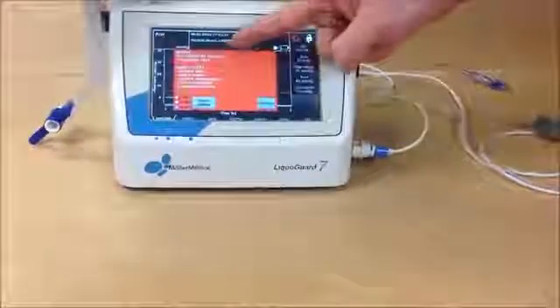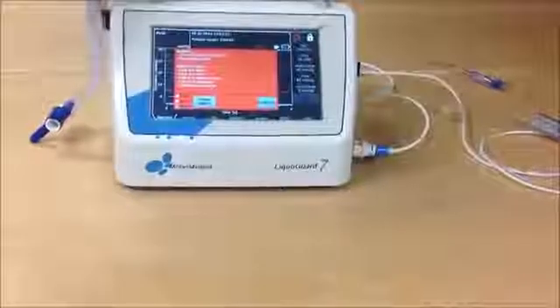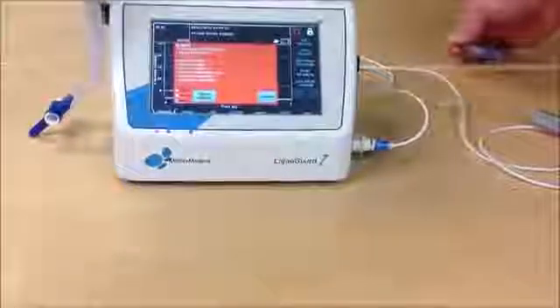We see pressure is too low and pulsation is lost. Two indicators for a big problem. As we can see here, patient is running empty.